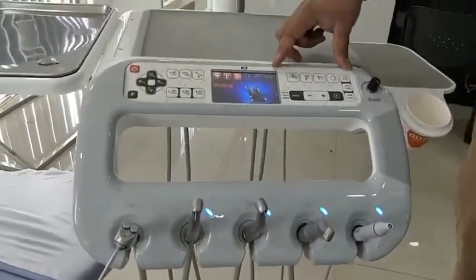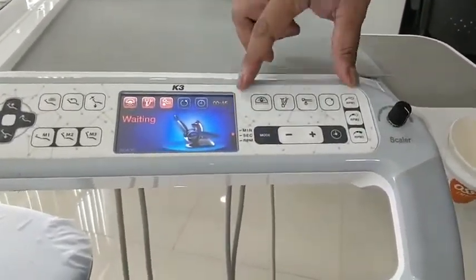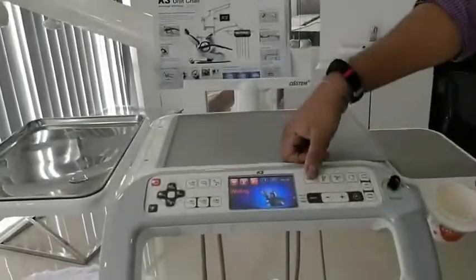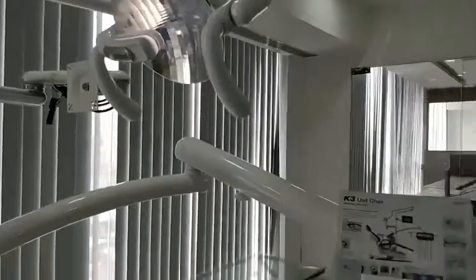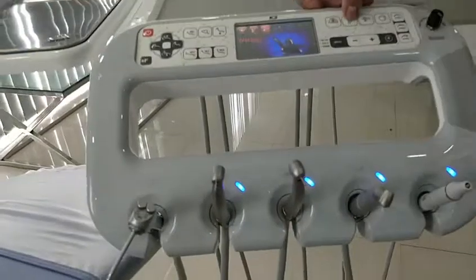Now let's look at the accessory panel buttons. The first button is the light switch — you can see the light is on, and clicking the button turns it off. The next button controls the water supply going to the fiber optic handpiece.